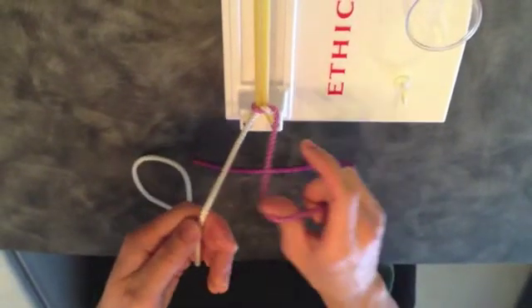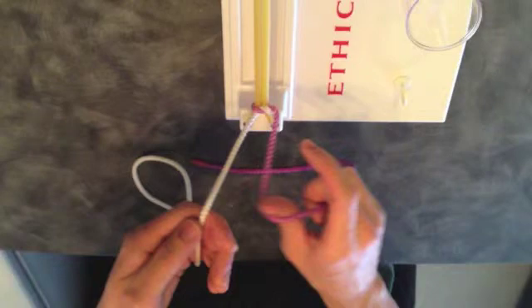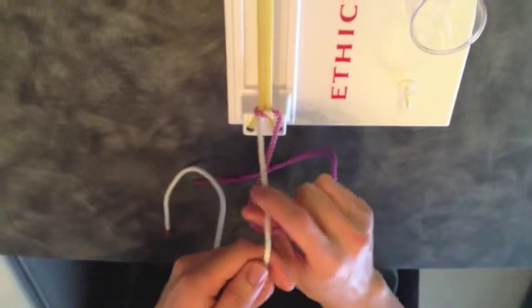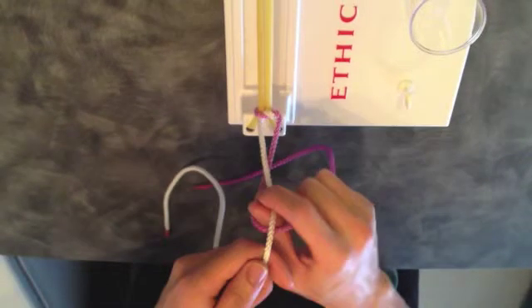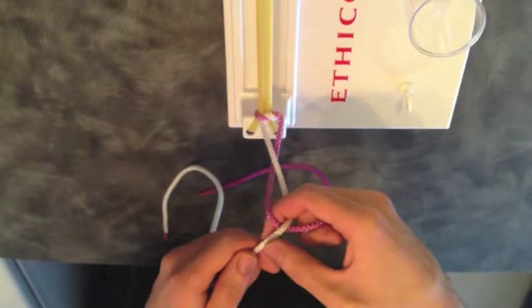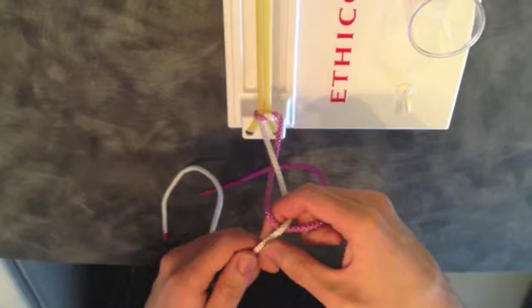Bring your hands back to the center. Loop the strand in your right hand over your thumb to create an L shape. Take the strand in your left hand and cross it over the L to create an hourglass shape. Touch your right index finger to your thumb and rotate your wrist to grasp the strand held in your left hand between your right thumb and index finger.